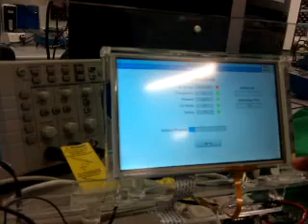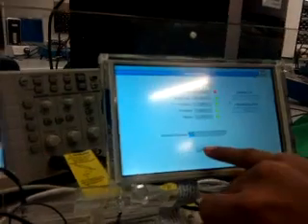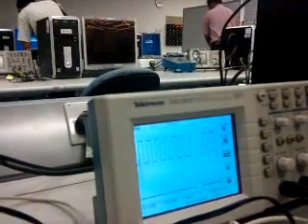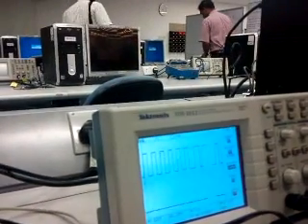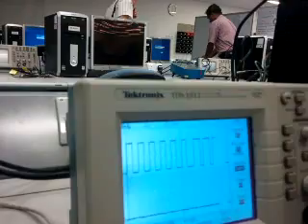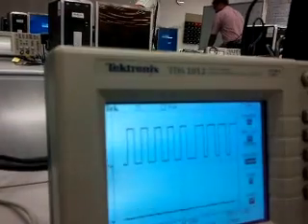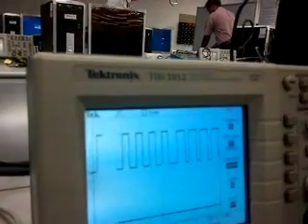Now we'll start. I'm going to start the GUI again. Yeah, you can see a change in the PWM wave. Infusions has started again.